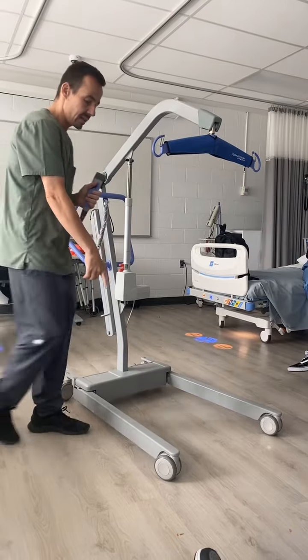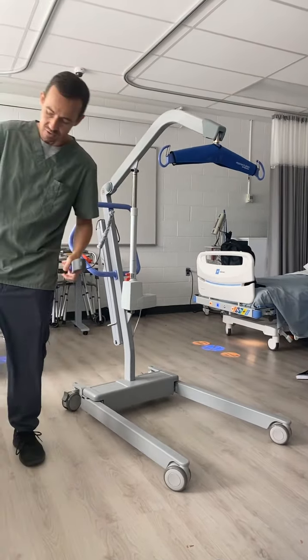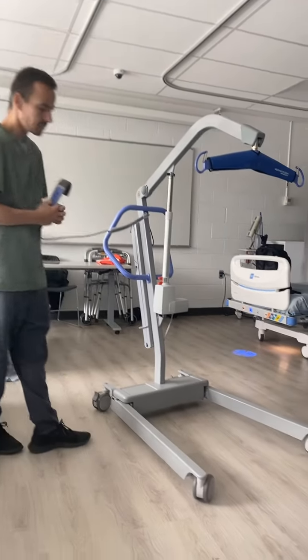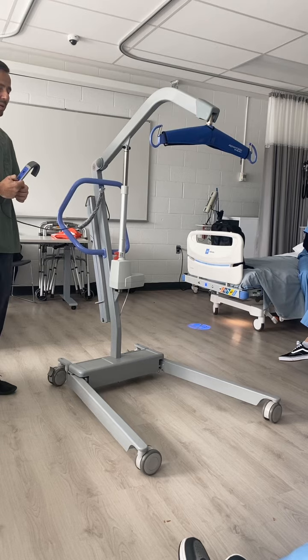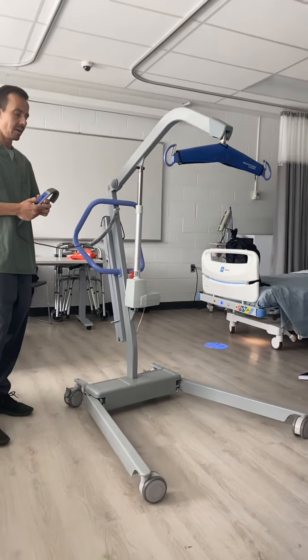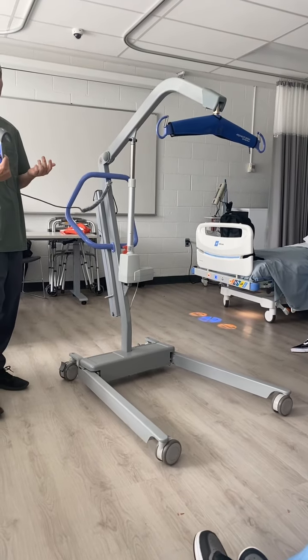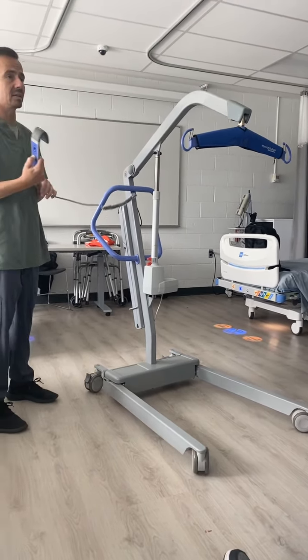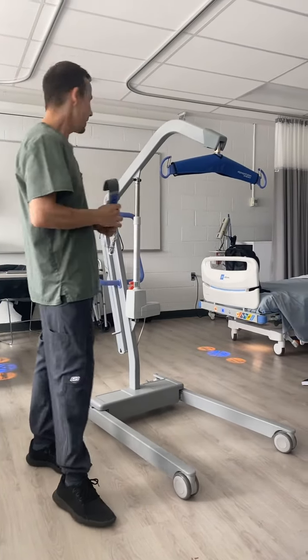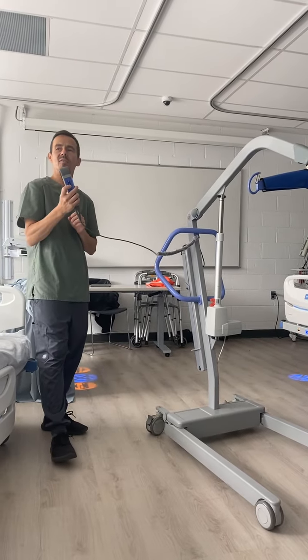And then this, so that you can get around a chair or underneath a bed if there's something underneath the bed, the legs open to make sure that you can get on your chair. And it closes. That's all there is. If you have a ceiling lift, it's even more straightforward because the only function you will have is up and down.